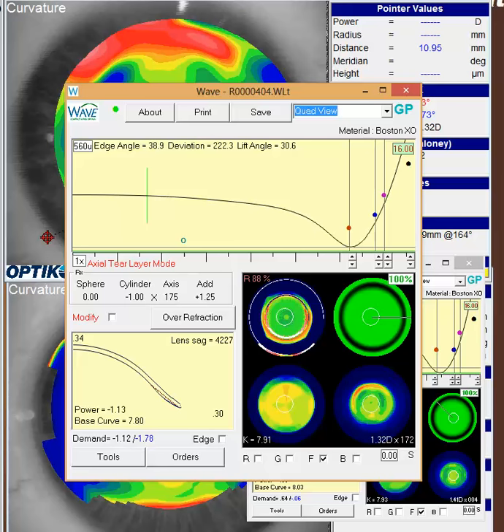For example, that inferior area that you're having some trouble with, you can just click on the radial, go to 50%, and just make the design adjustments in the peripheral part of this lens. Either you can go up or down using the pink dot.